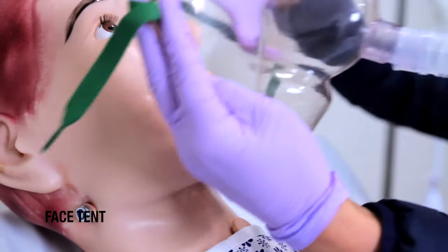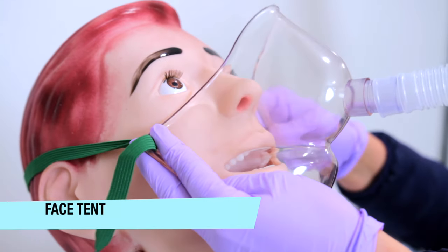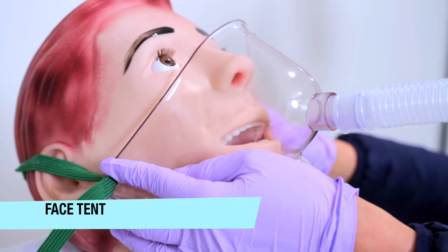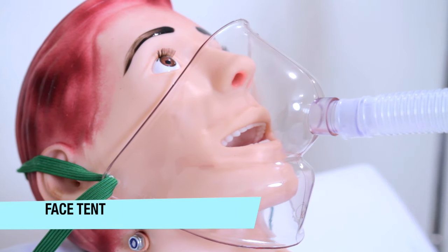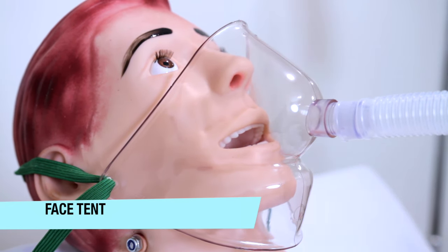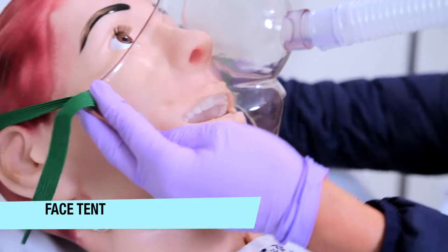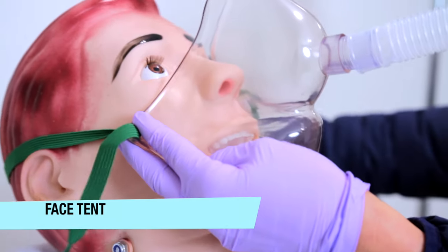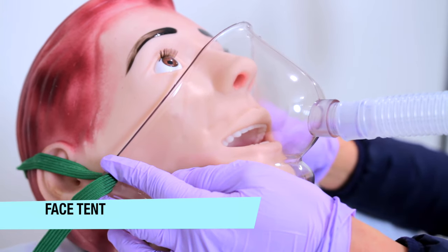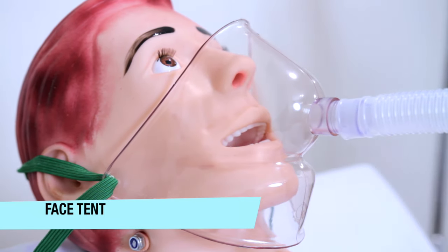This is a face tent. The face tent falls under the aerosol method category that offers high humidity, allowing gas to be cooled or heated with delivery through a tent. It is attached to wide bore tubing. A disadvantage of this type of face tent is it allows condensate to collect in the tubing, so it requires more maintenance on the provider and/or patient for delivery of oxygen.